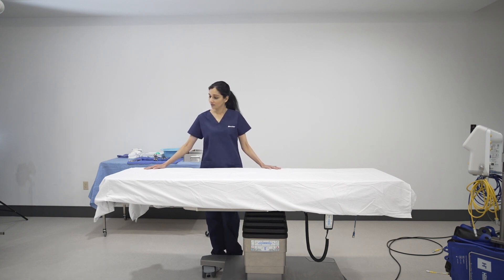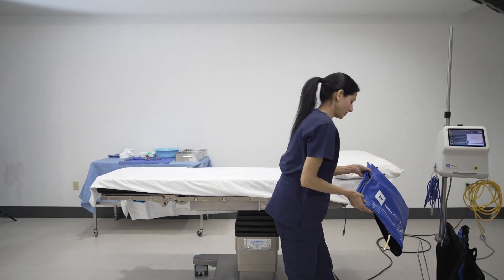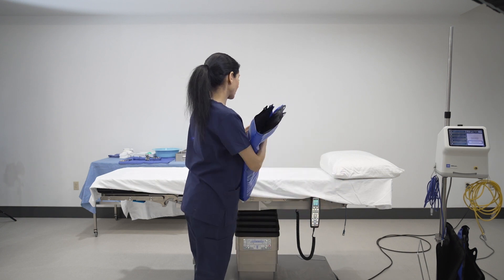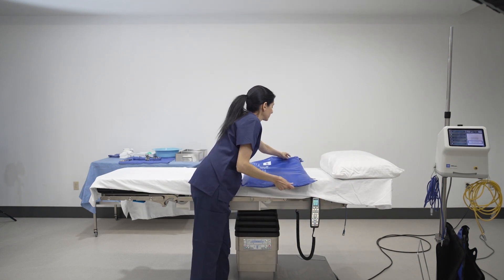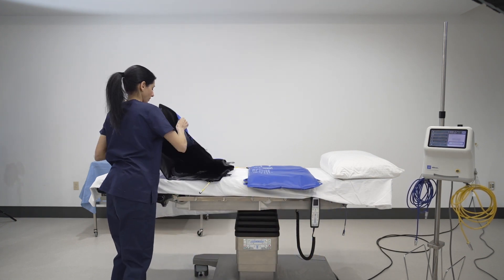Gel pads may reduce warming performance. The patient warming system has two different sized overbody blankets, the lower body blanket and the universal blanket. This allows you to customize the setup to the specific patient and procedure.